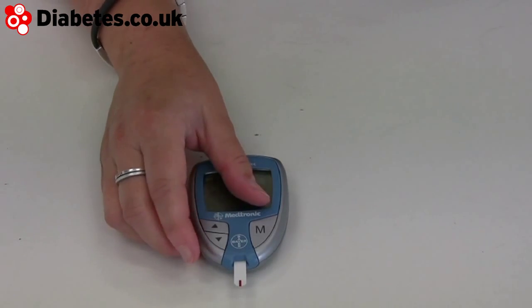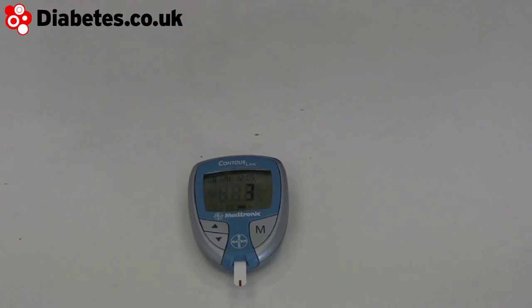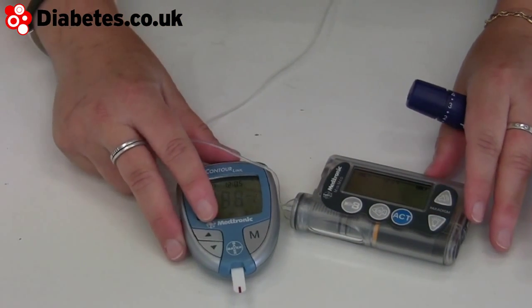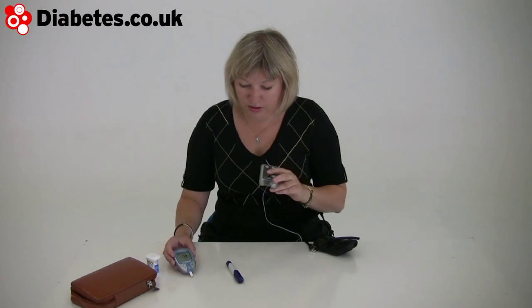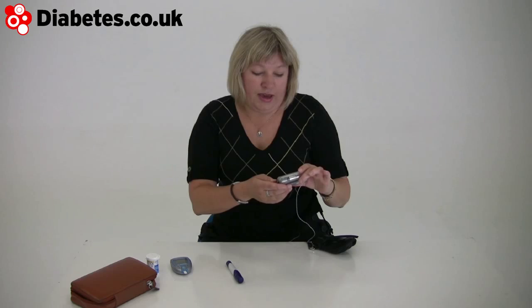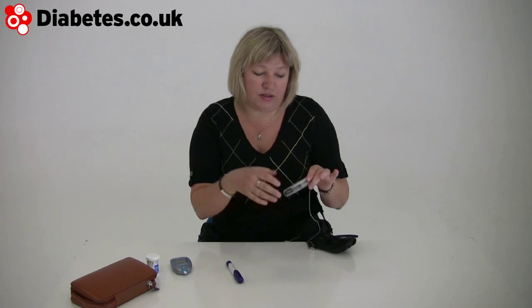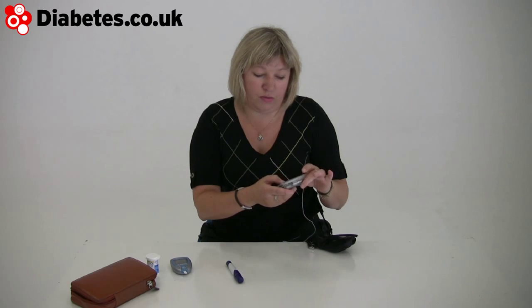Countdown, normal five seconds. That pings in there — and it's maybe not that easy to see, but that tells you what's going on. The joy of that is that you can actually just press act, bolus, use bolus wizard. It repeats what that reading was, which is 7.4.